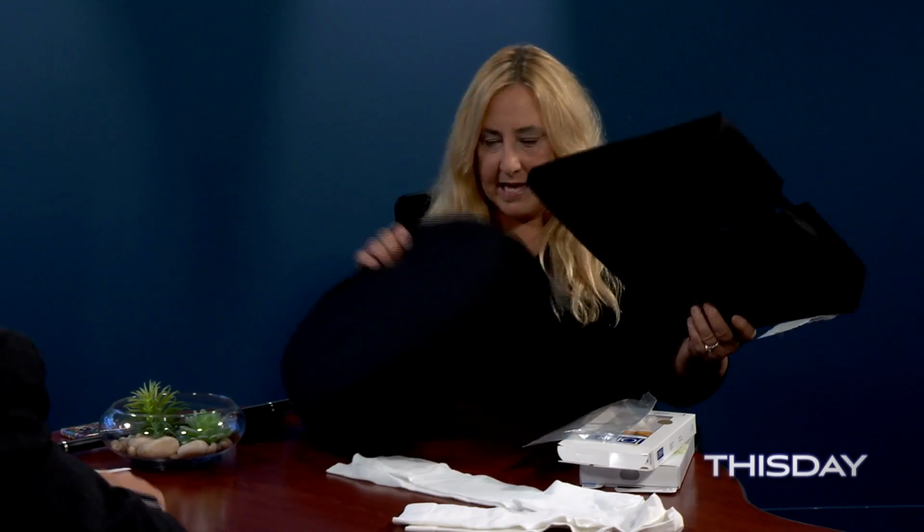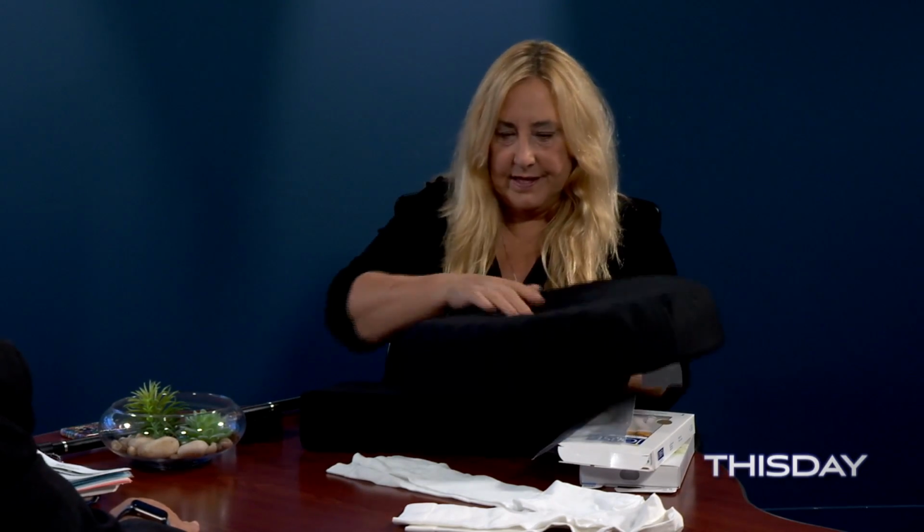Okay, so this is a big one, and these are all really common things that come into the store all the time. So this has a hole. It's hard to see with the cover on it. But it has a hole in the middle. This is a donut. And this is a coccyx cushion. So the myth is, I'm sitting for a really long period of time, my tailbone hurts, I need a donut. The myth busted is that this pillow, if your tailbone hurts and you sit a lot, will make it worse, will make it hurt more, because it puts pressure up on your tailbone. What this is for are things like hemorrhoids and stuff like that.